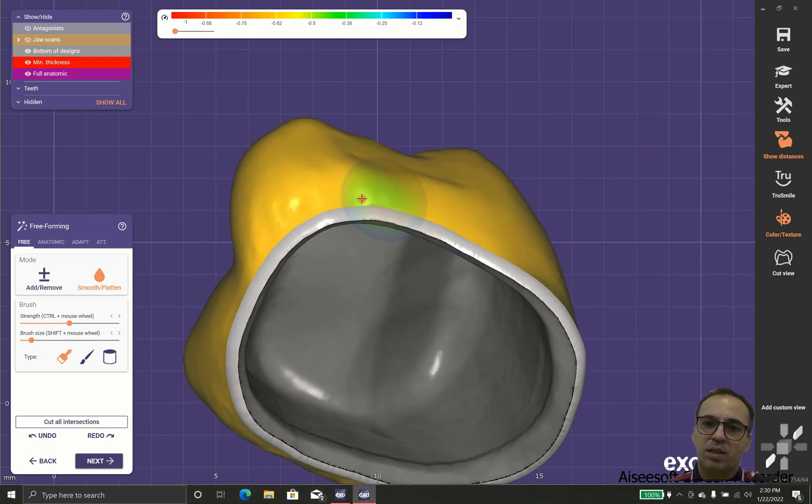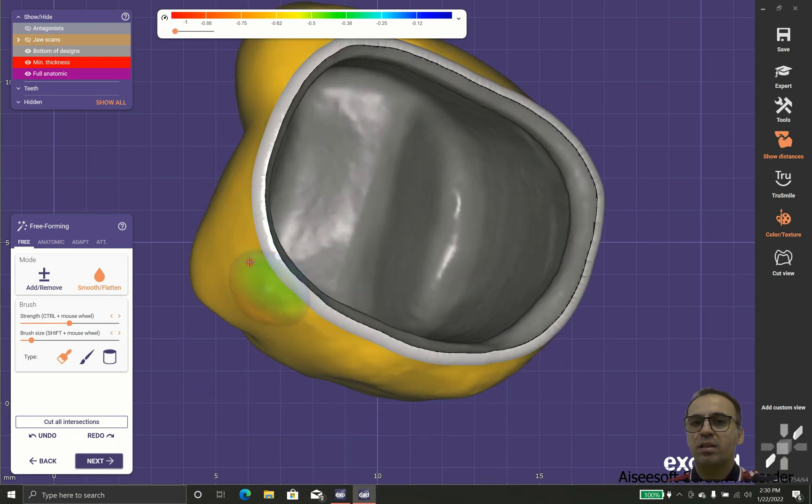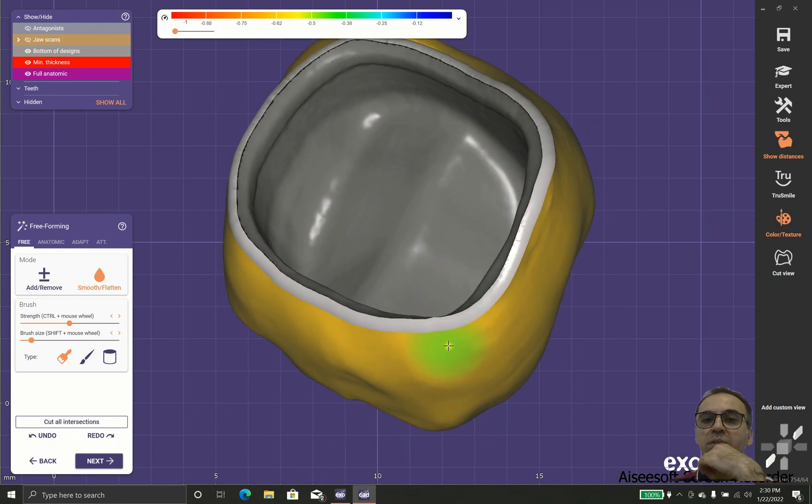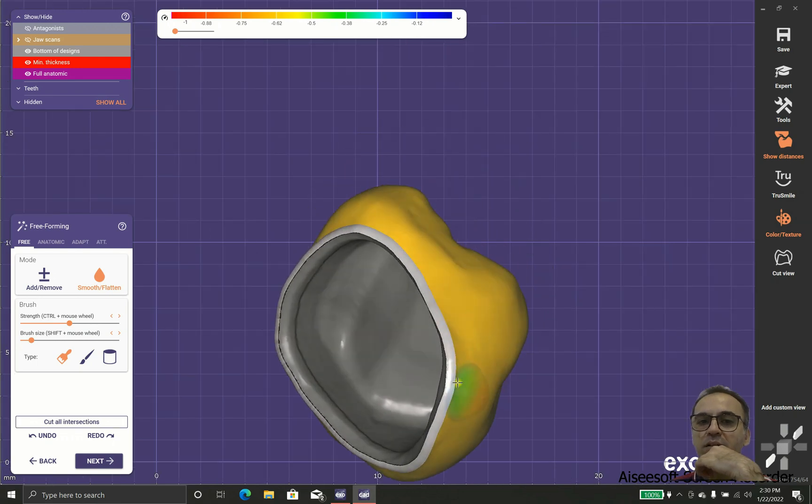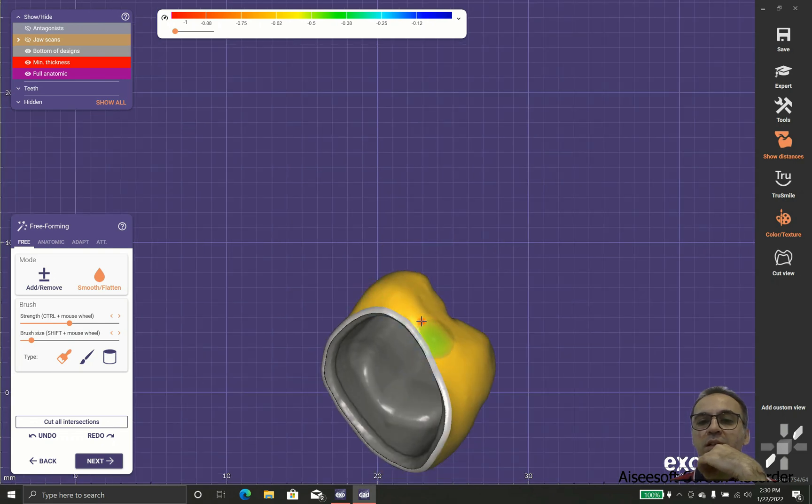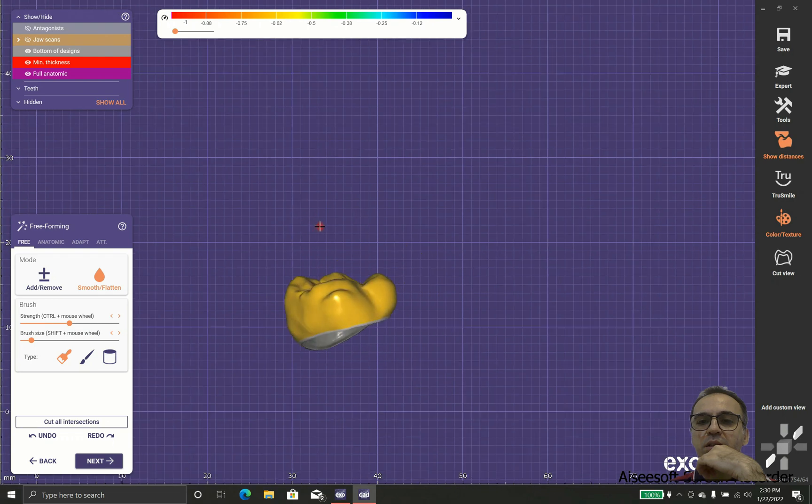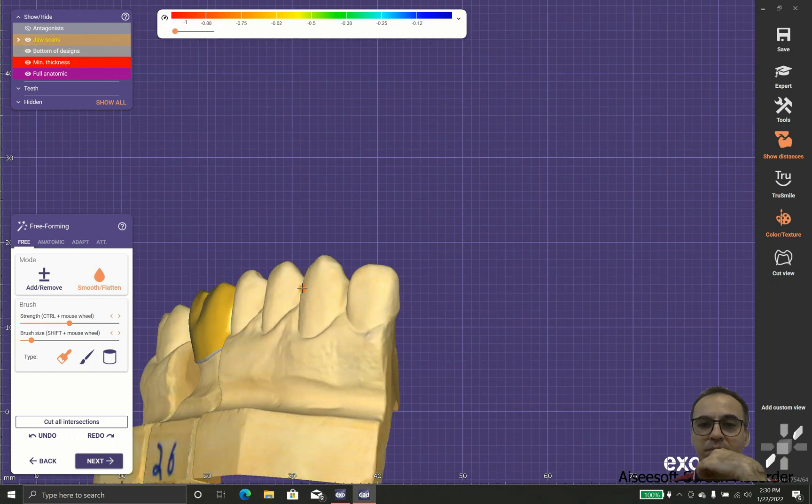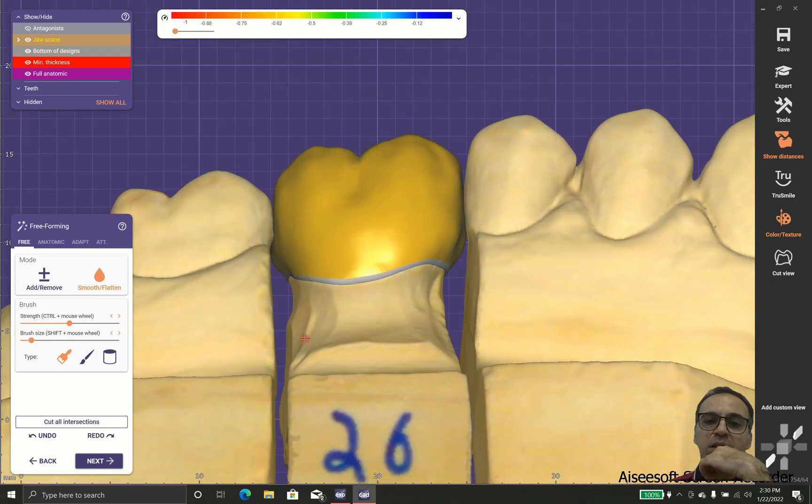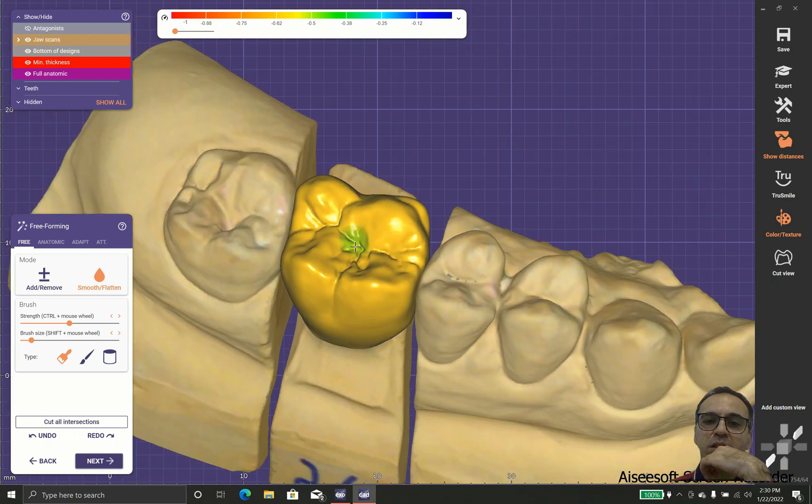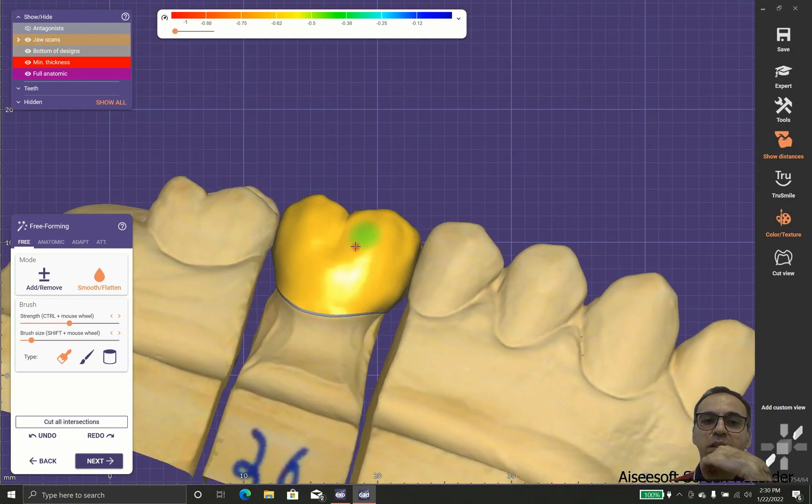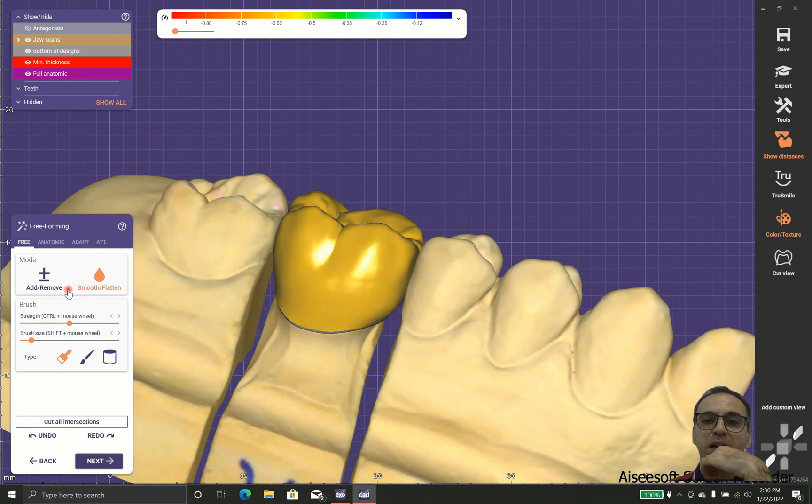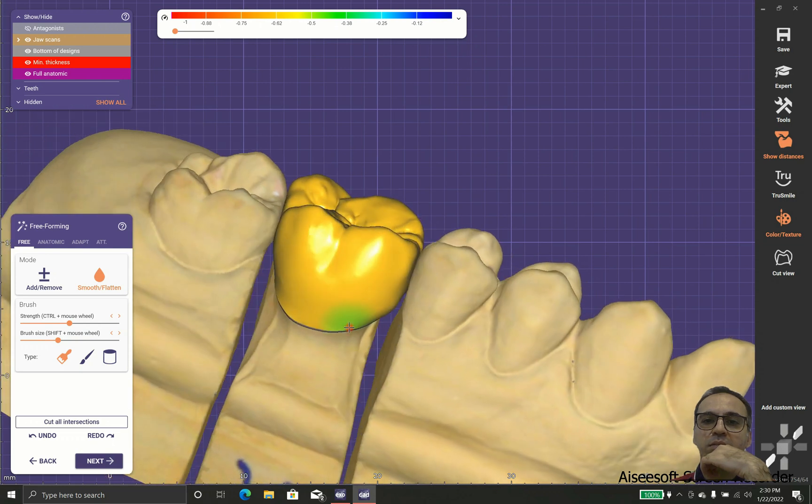One important thing in design is having the crown that could be flossed and could be cleaned. As you can see, we have a part that has problems. In this part the emergence profile doesn't look good, and for sure we have some problems with the periodontal fibers and maybe bad odor or gingivitis happen. So we soften the near part of the margins and check it again whether there is any error or any bad part. That's good and looks fine, beautiful.